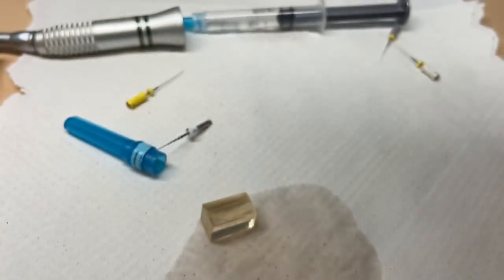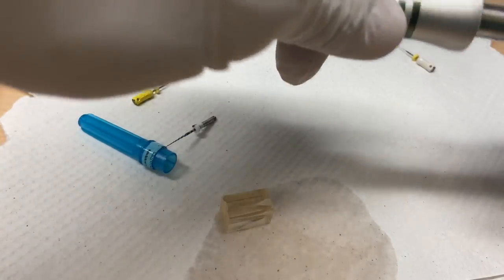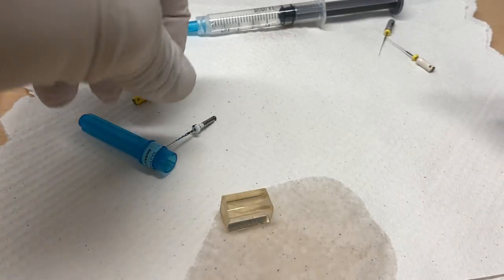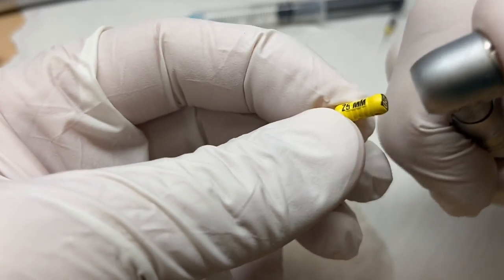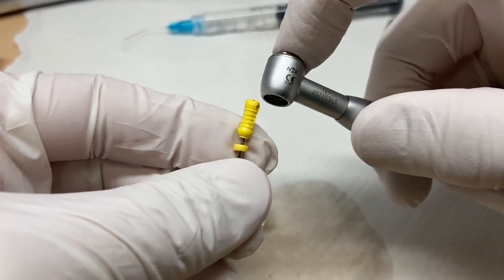So, is it necessary? Absolutely not. But this M4 handpiece, I just want to introduce it to you because if you're starting to do a little more endo and some of those cases, you're like, you know what, maybe we can speed them up. Let's try this.